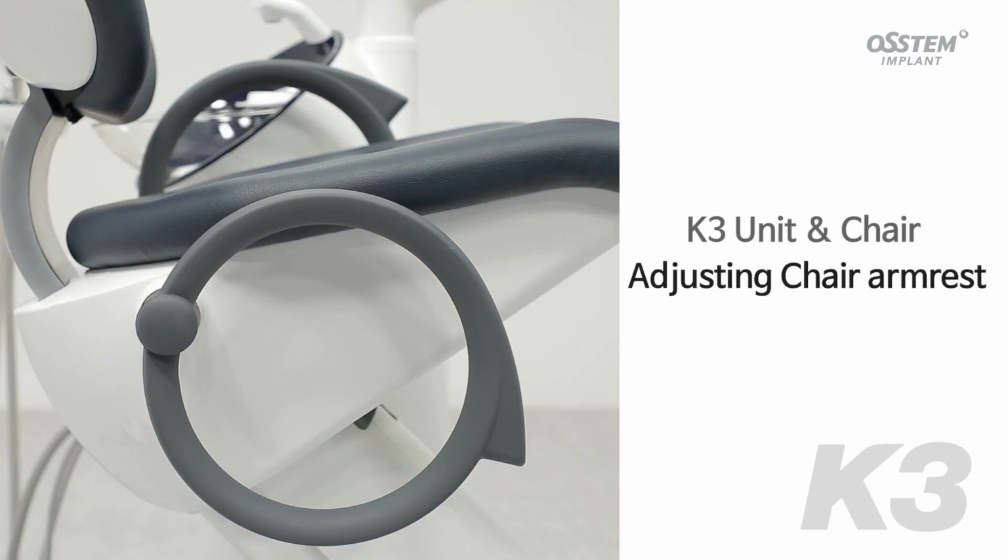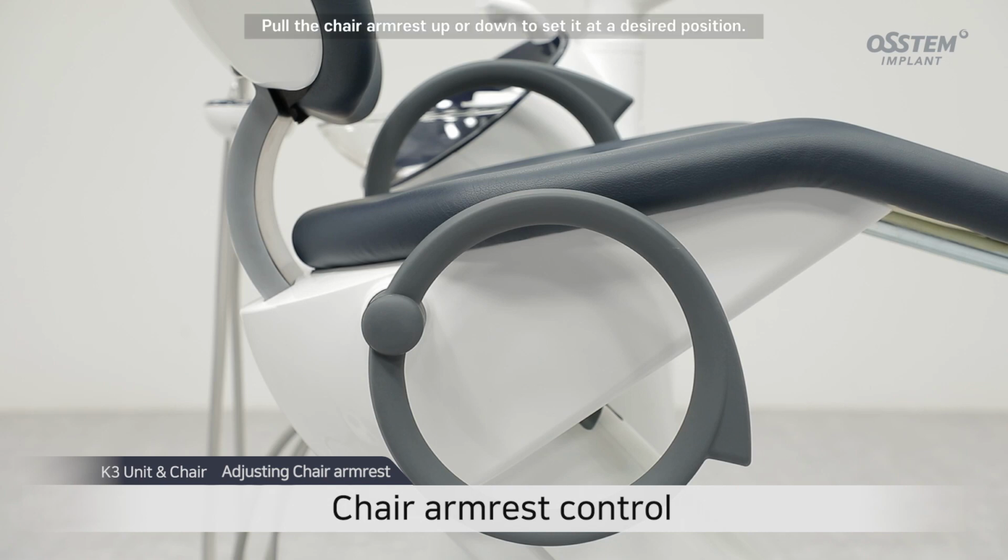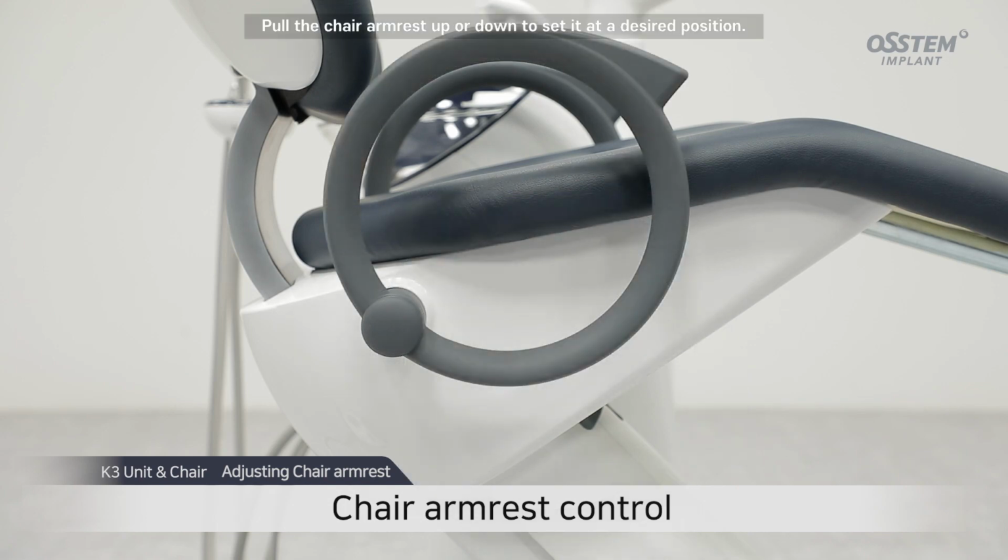Adjusting chair armrest. Pull the chair armrest up or down to set it at a desired position.